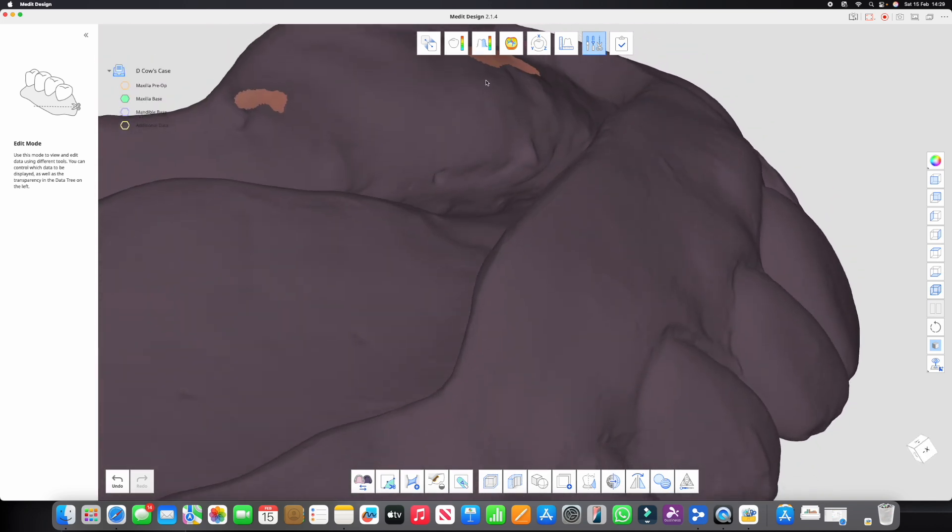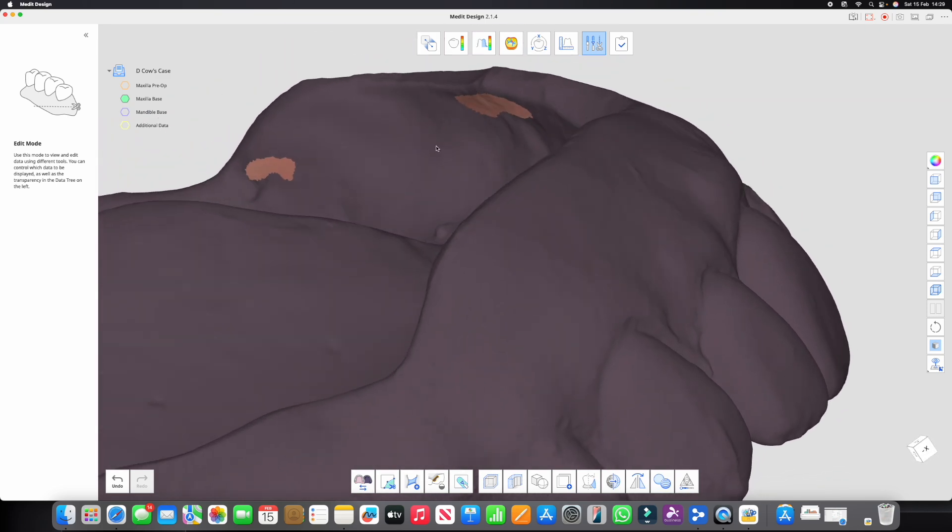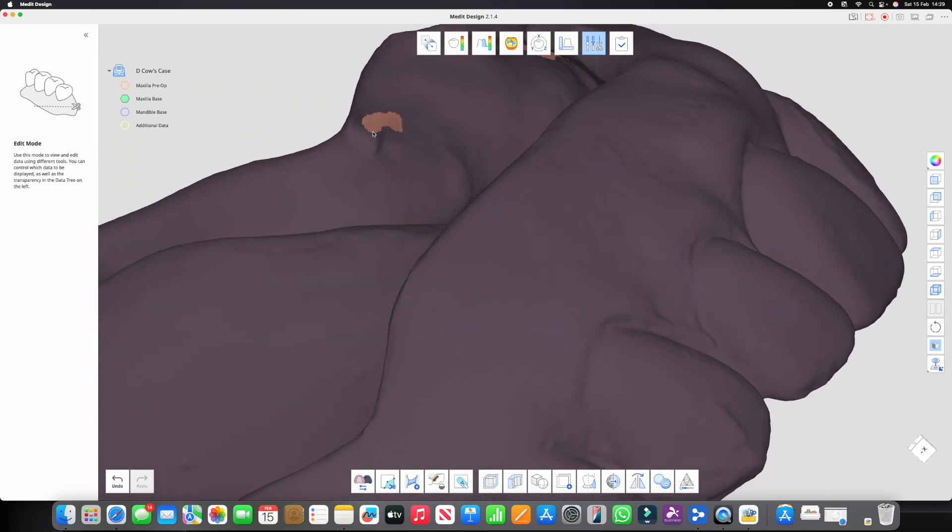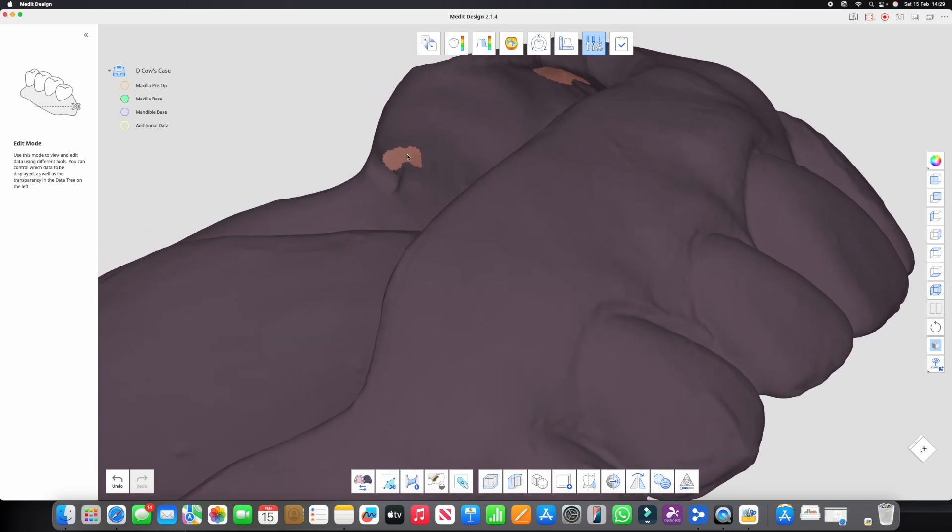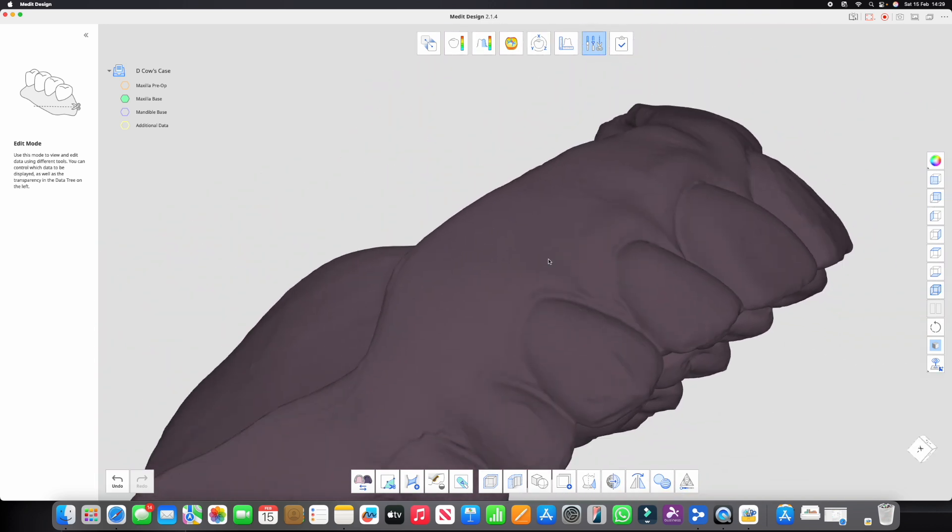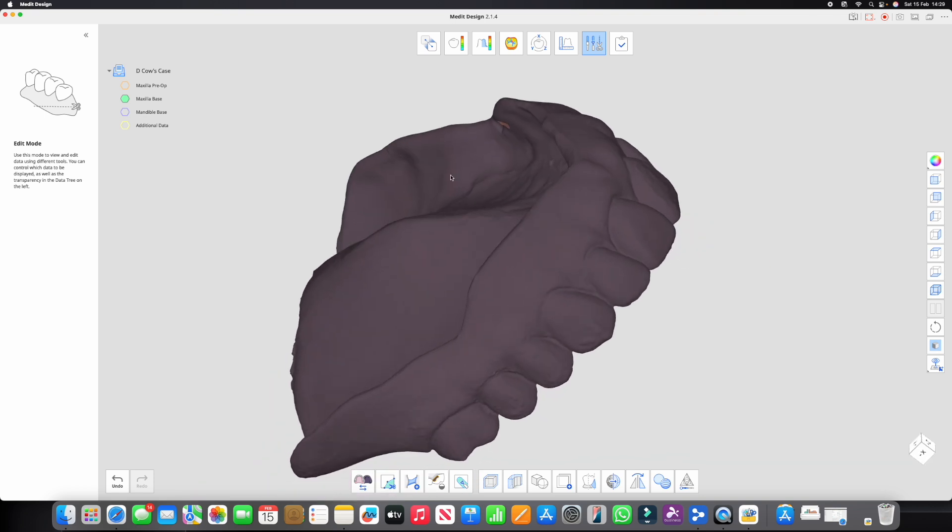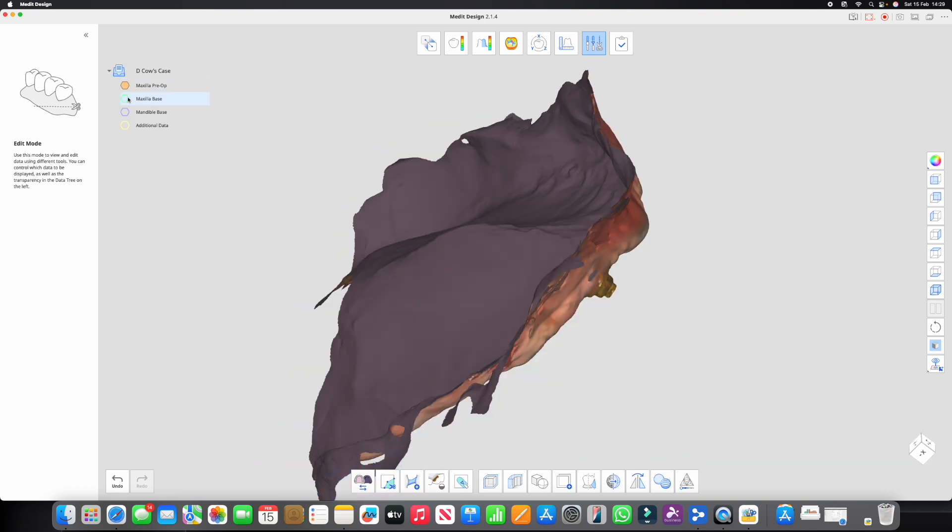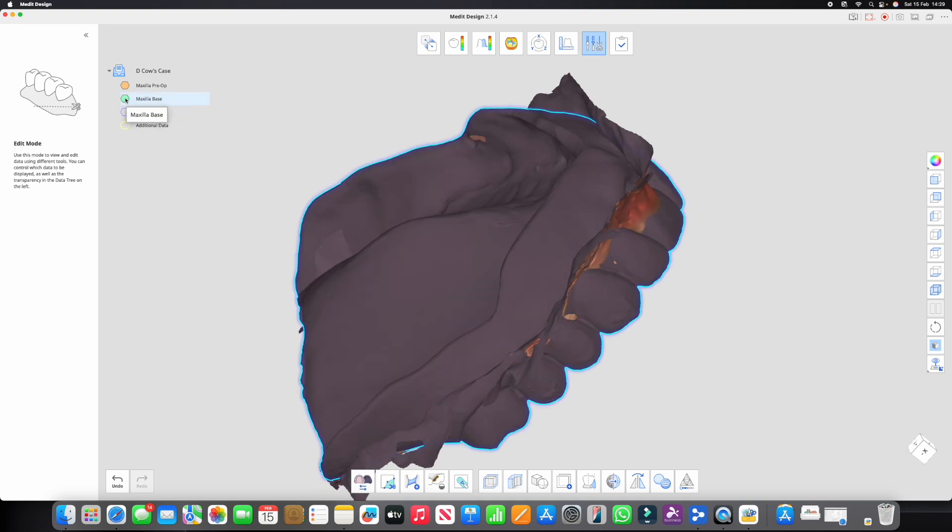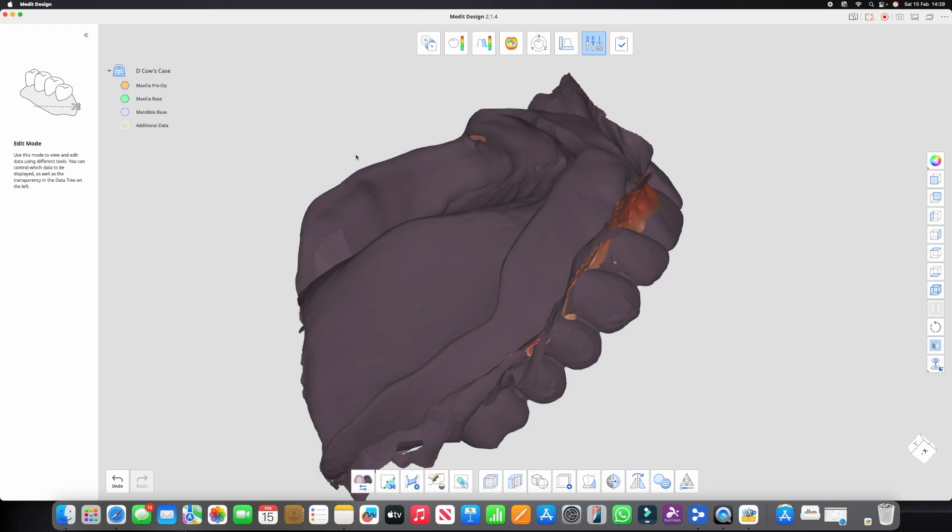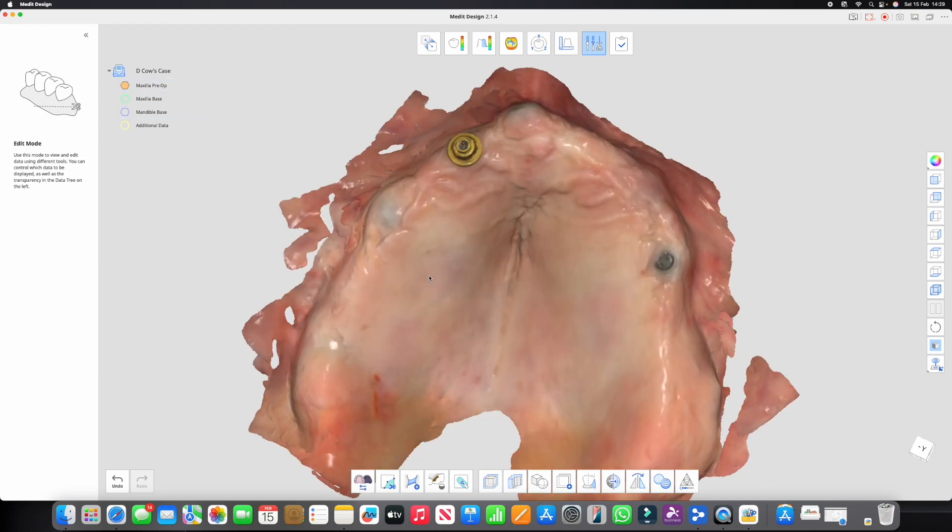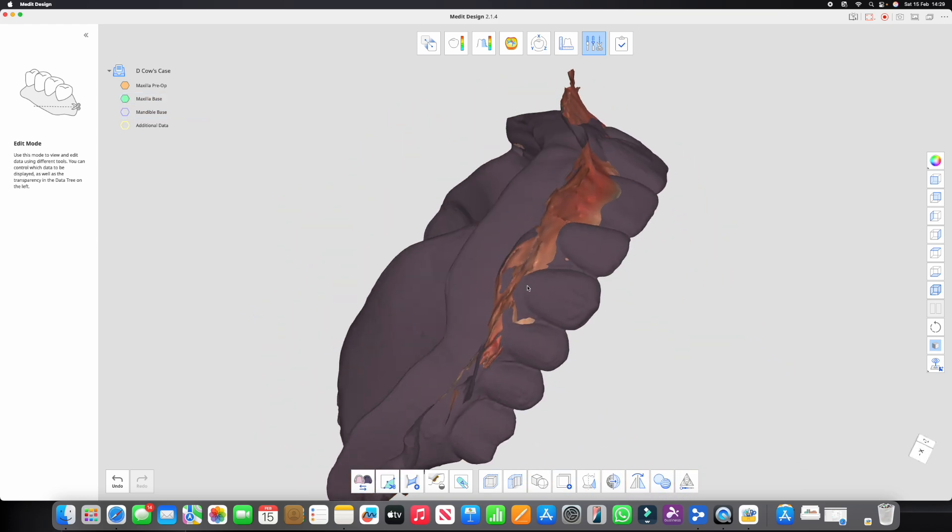Okay, so if we look through the little hole, you can see the inside of that now. The color map from that scan is showing on the inside of this. So what does that mean? It means now that this is the same as this. Can you see it? So that's dark, that's dark. Okay, so the surface that we want to align to this surface will now align with the inner surface of this.